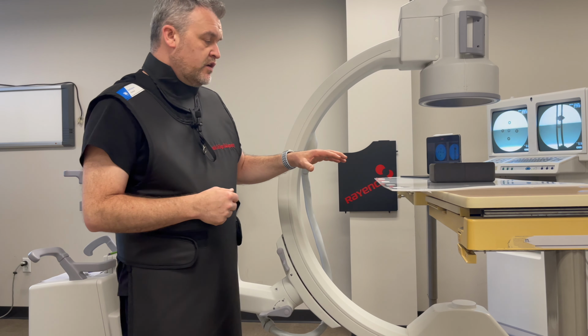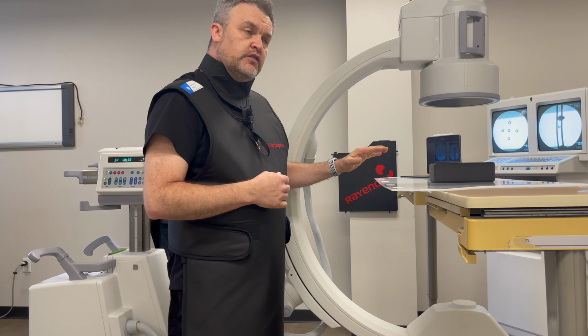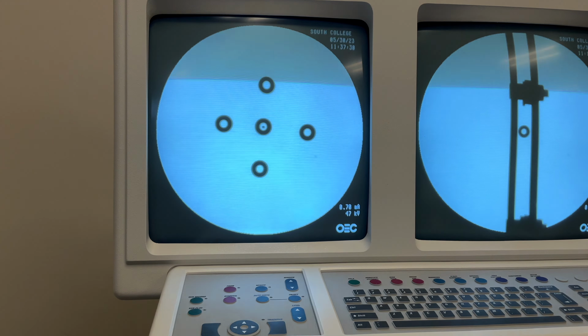So in this example here, I have a foam block which has washers laid out in a certain star configuration, and I have a BB on the underside. What I would like to try and show you is placing the BB inside those washers every time I go back and forth. So our first image here, that would be our true AP or PA, whichever. So this is our first image.